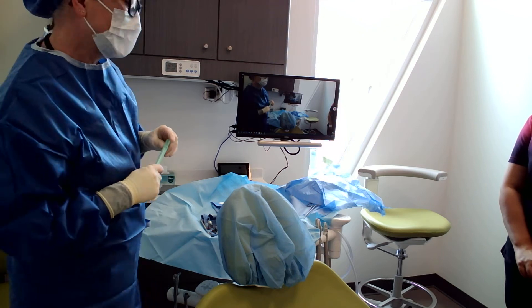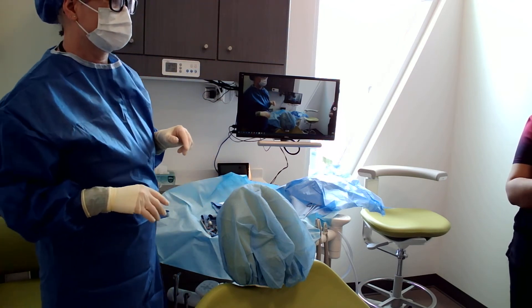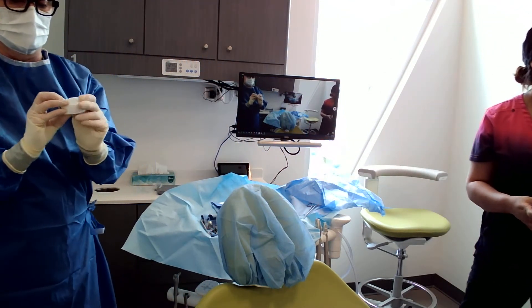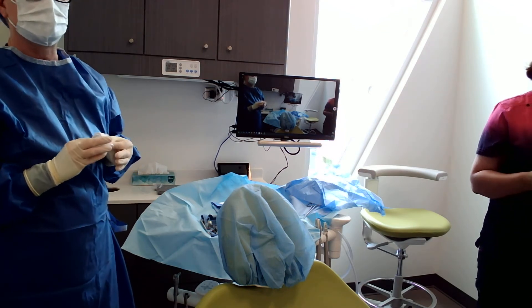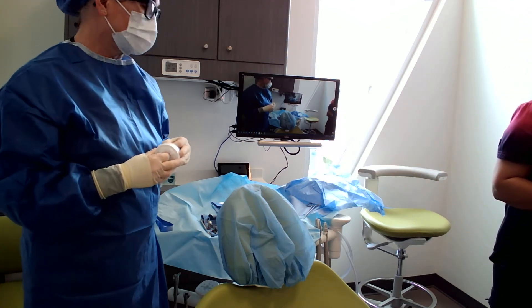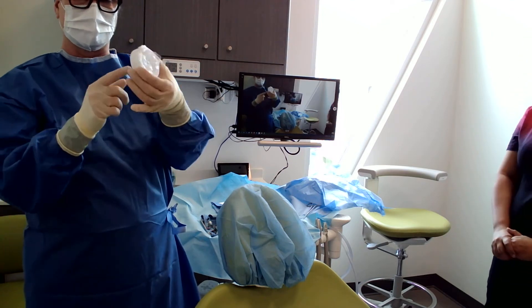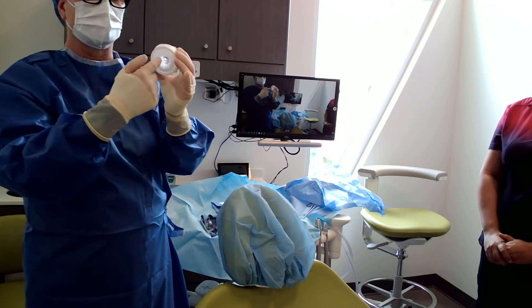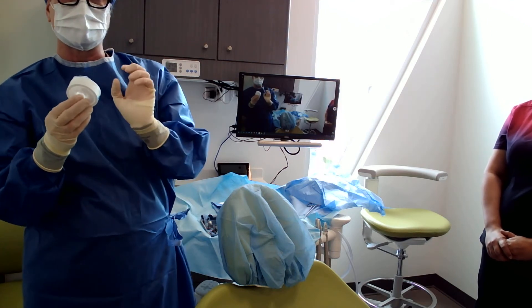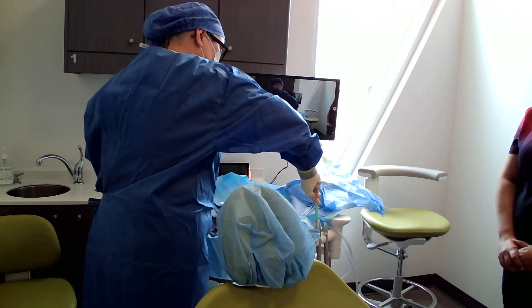The nurse could open the implants for us. These are called rapid rolls — they're sterile barriers. When you open them, make sure your tubing is going through the correct way. If I had an implant handpiece, I would cover the hose so it's sterile. For the suction, I'm going to hold one end and Nina's going to grab the white end and bring it all the way down. You want to make sure you have a good hold of whatever instrument you're barrierring.